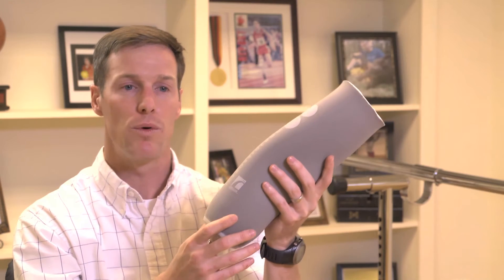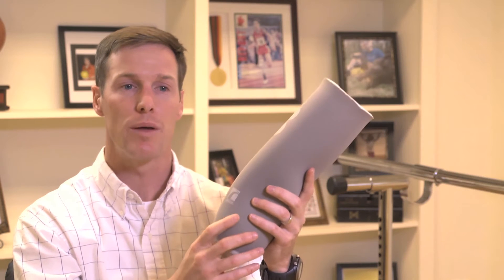One of the foundational components of a prosthesis is the gel liner. It is basically a gel sock that rolls up a patient's limb, providing cushioning, support, and a variety of other things for that patient.